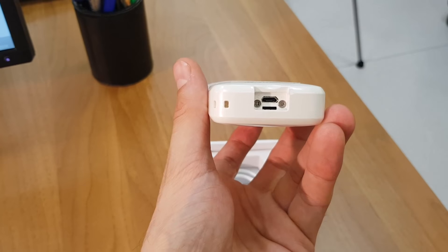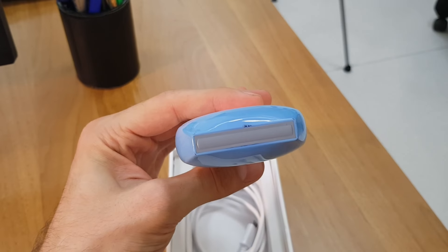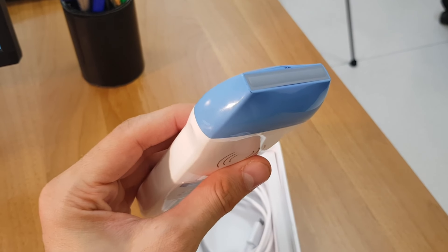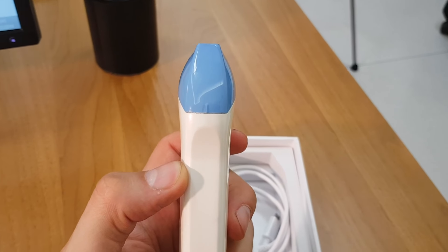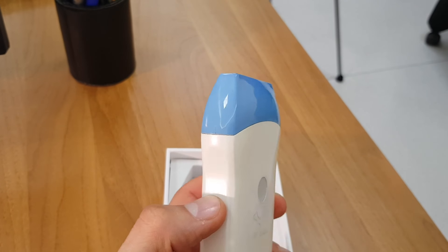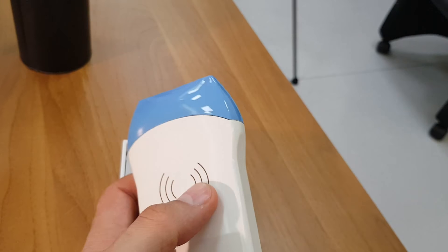Below there is an attachment for the USB cable. This is the piezoelectric crystal, which is the core of the ecograph — so if it breaks, it's broken. There is a marker that serves for orienting the probe, and it is always set toward the patient's right side or toward the head, depending on which direction you place the ecograph.